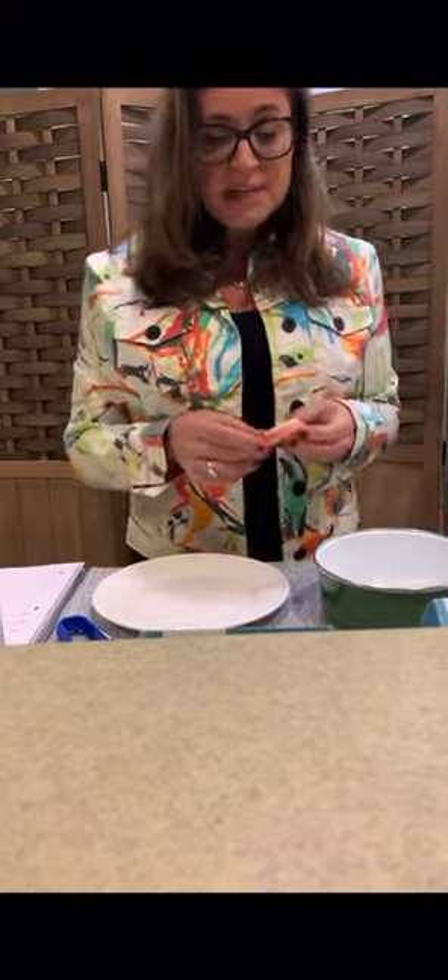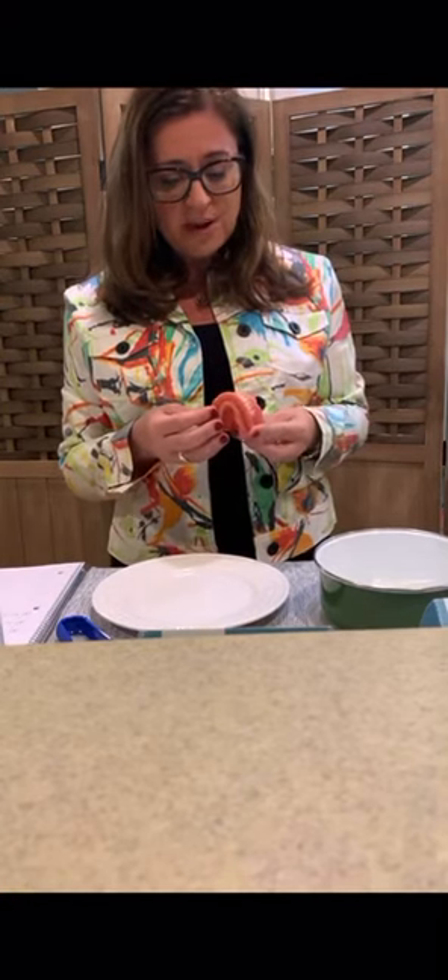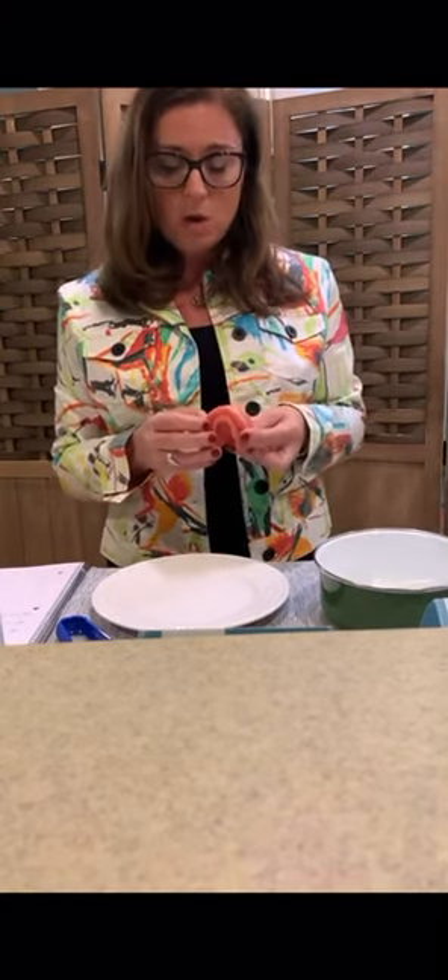Another place dentists say this would be great is for when a patient has a denture and their pets get a hold of it. Apparently not only dogs, but cats also like to chew on their owners' dentures, causing quite a problem if the patient really needs something right now. Easy Denture can be a good fit for those patients.